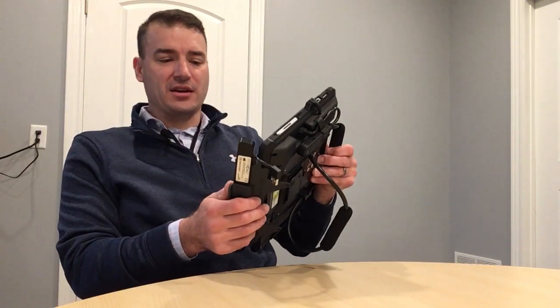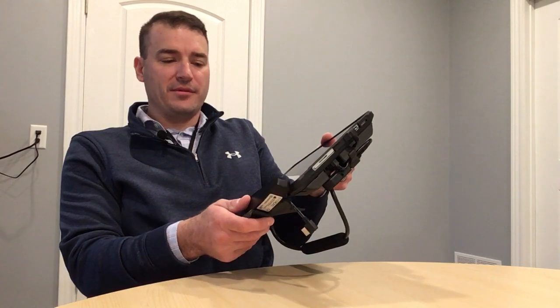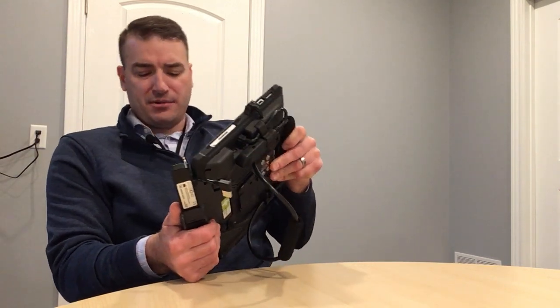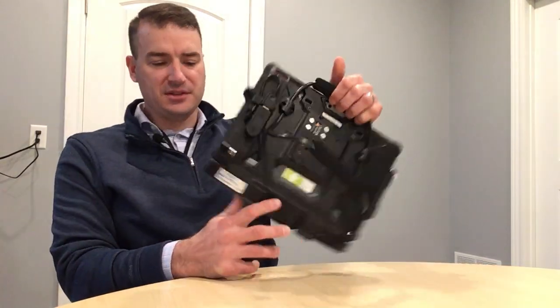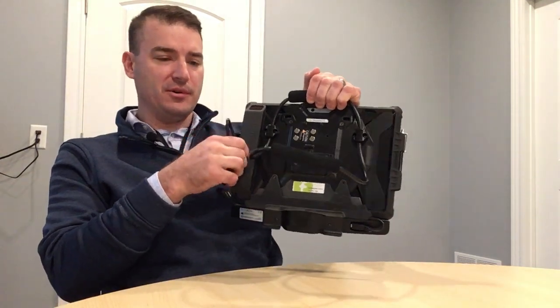Or if I'm a clinician and in my clinic I see many different users, I can add or remove eye tracking as I need to. To add this, I line up the bracket with the bottom of the tablet, then I just push in and rotate upwards and you'll hear it snap into place. I'm going to remove the port relocator because we don't need that anymore.